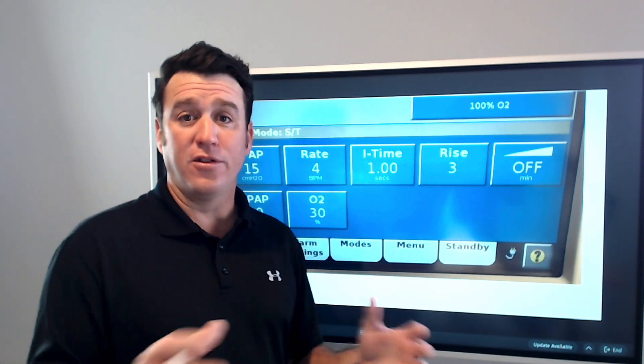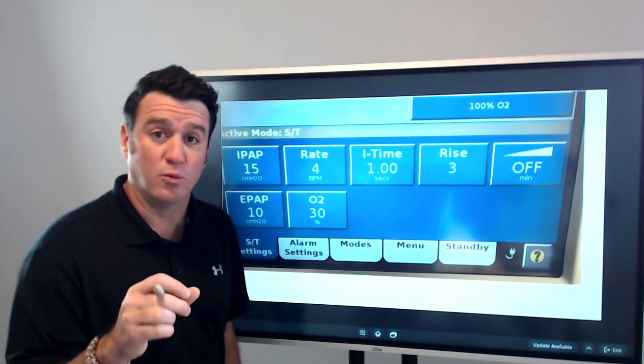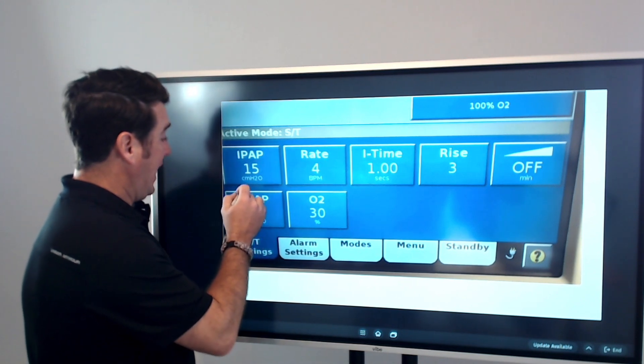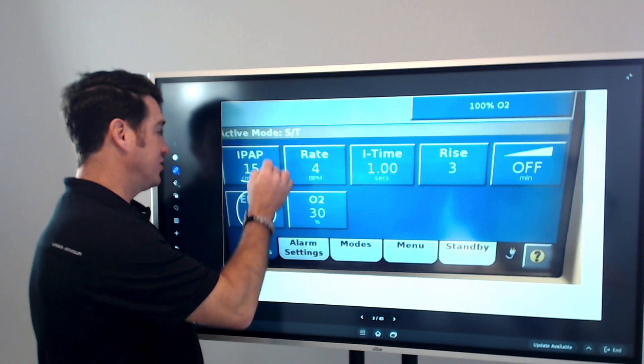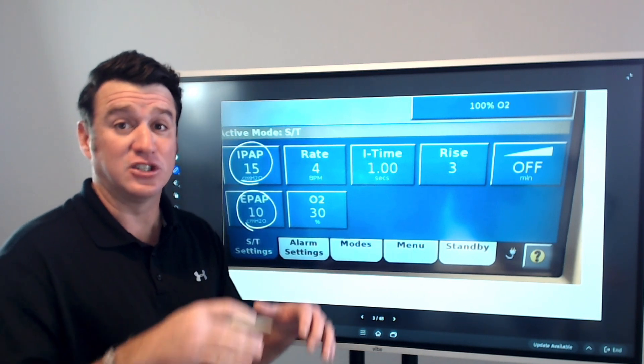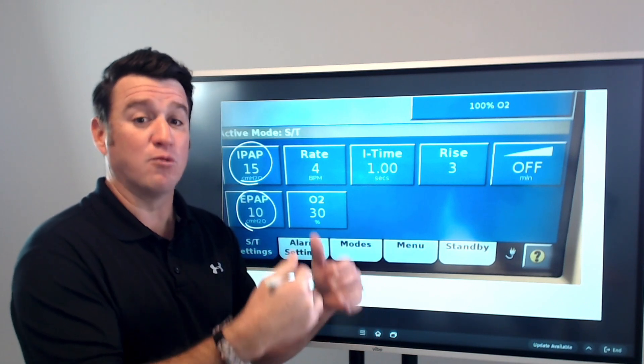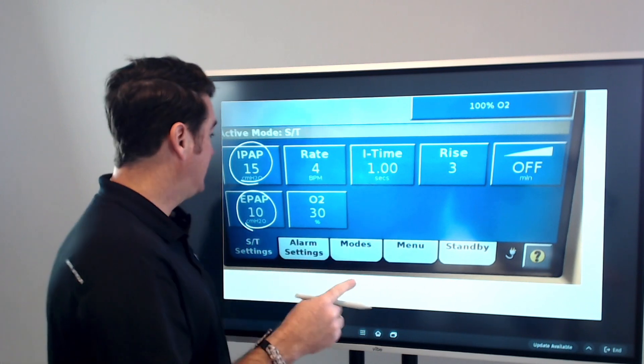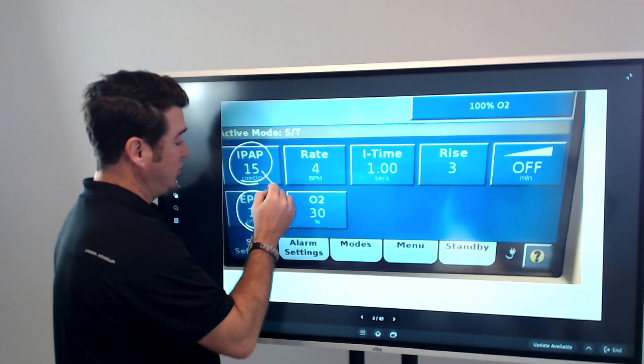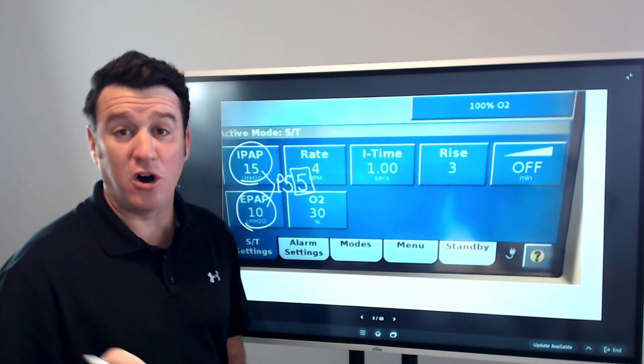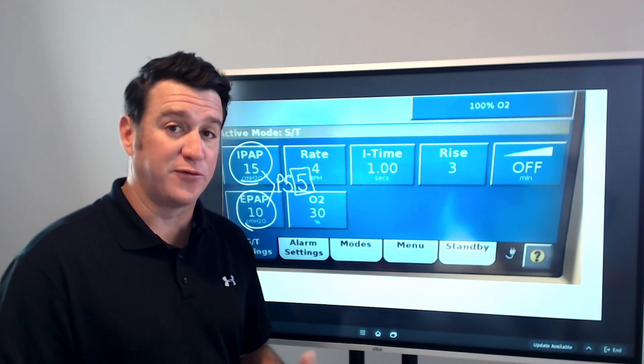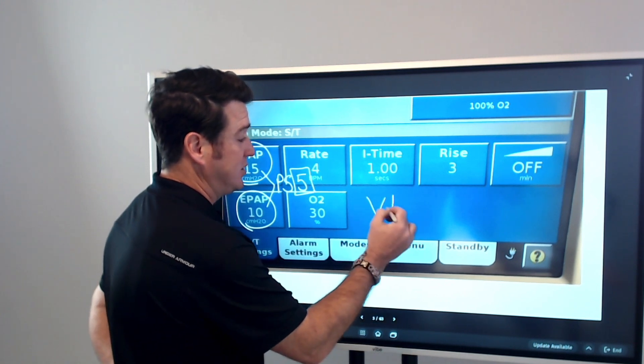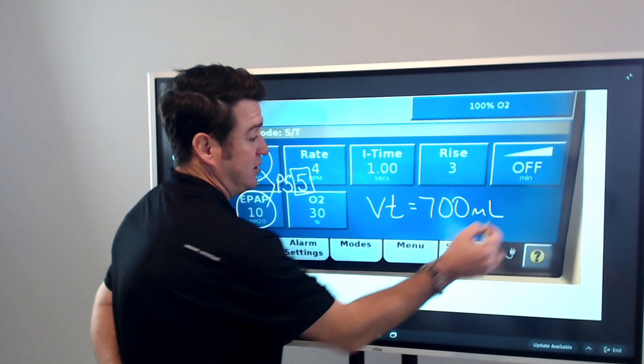Otherwise, all this vent is doing in this mode is allowing the patient to determine when they want a breath. They're starting at EPAP of 10 and they're raising the pressure to an IPAP of 15. That's what the V60 is doing - holding an EPAP of 10 and raising to an IPAP of 15. This is important because the difference between these two gives us a pressure support of five. That's a very small amount of pressure support. When I walked into the room, the first thing I noticed is my spontaneous tidal volumes were averaging around 700 milliliters.